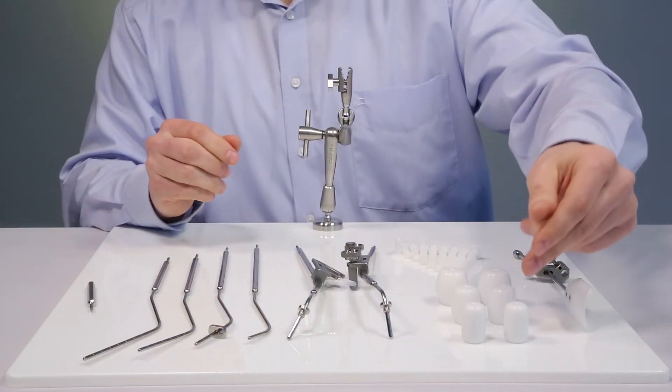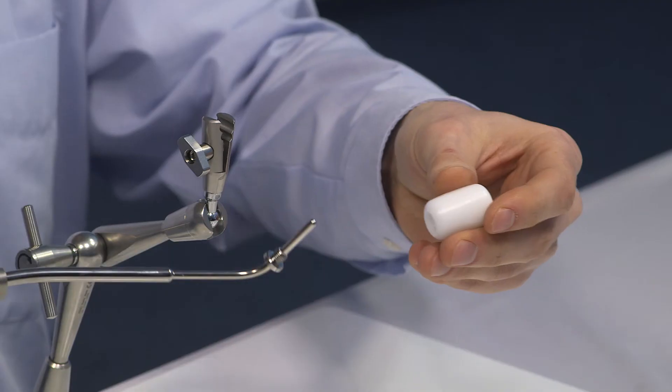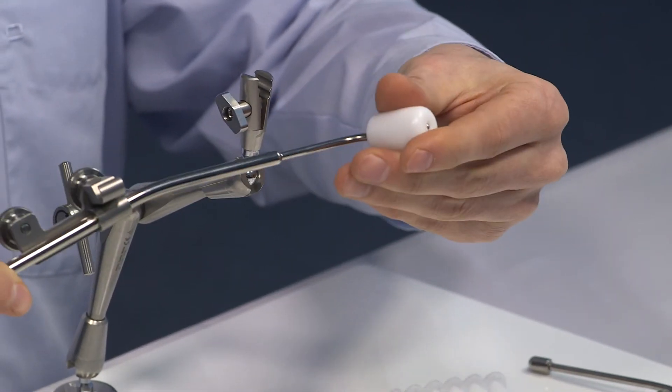Now I select a 2 centimeter ovoid and the ovoid tube and simply screw it on the ovoid tube.